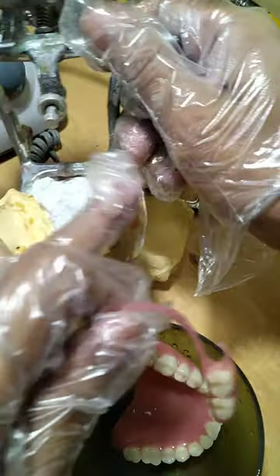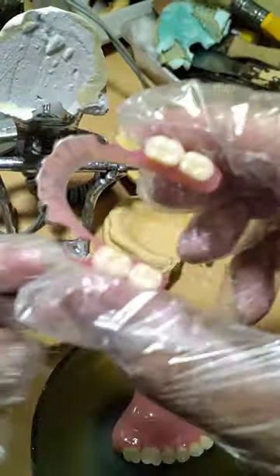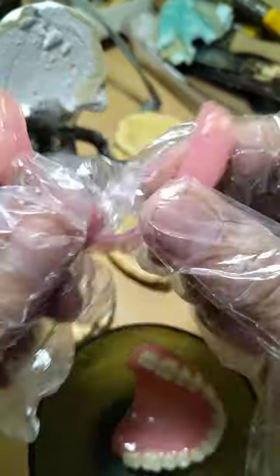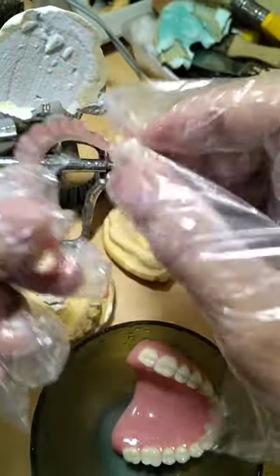Kulang na lang siya ng mga bagang molar teeth. Ito yung pinagawa niya — lower flexible. Napaka nipis. Pwede mong gawin, parang tirador. Siyempre, kasing pusiso — hindi dapat paglaruan.